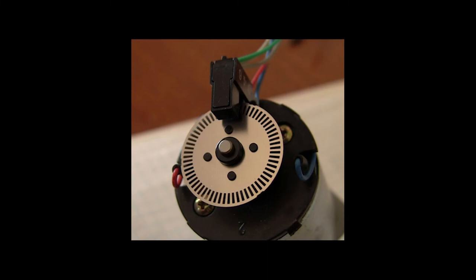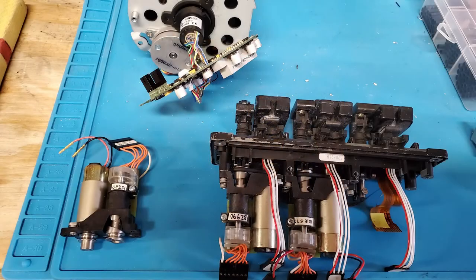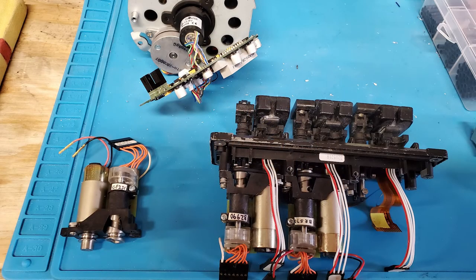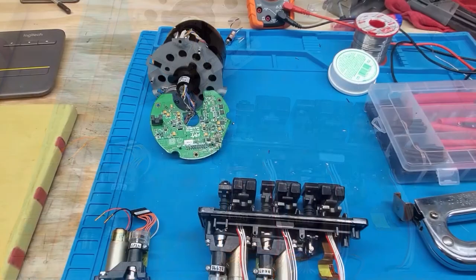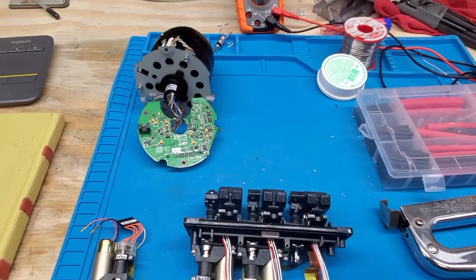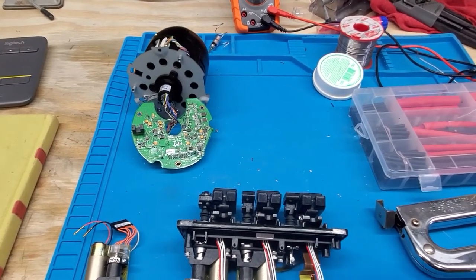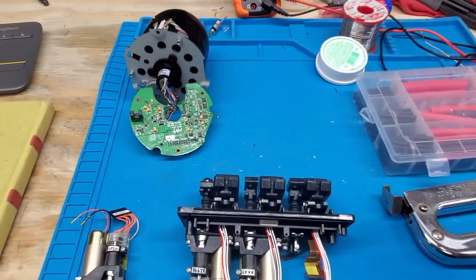These configurations are often found on irrigation pumps, syringe pumps, and infusion pumps. Let's take a look at a couple different applications for optical interrupters found in medical equipment.